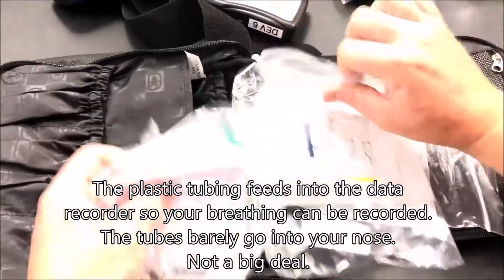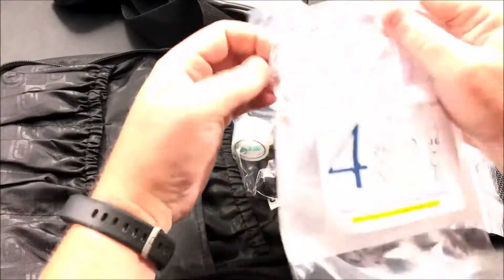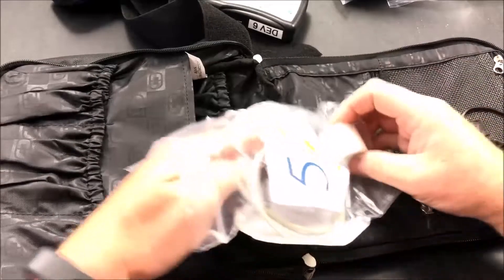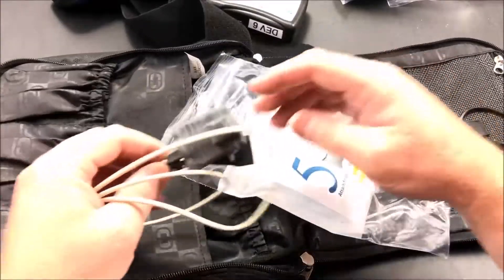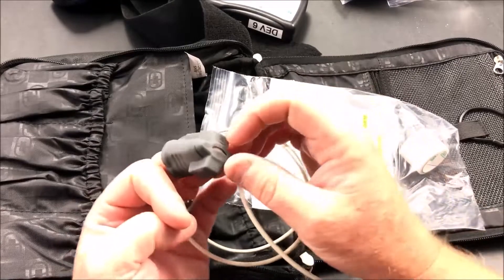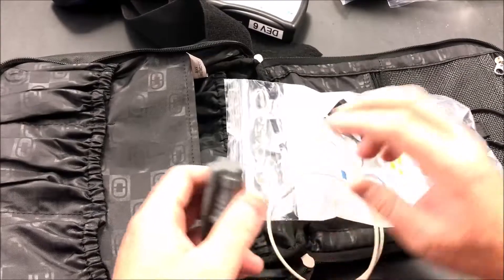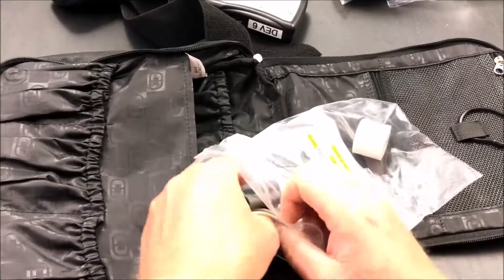Last but not least, they want to measure your blood oxygen while you're sleeping, so that brings us to bag number five. It's a simple device that goes on your finger. It's actually pretty robust and comes with a roll of tape for strain relief. The electronic end goes into the main controller, and your finger just goes in all the way so you can see it protrude through a little bit. Then you wrap tape around it to keep it on your finger. You're completely untethered — nothing tied to a nightstand — so you can get up and walk around if you need to.